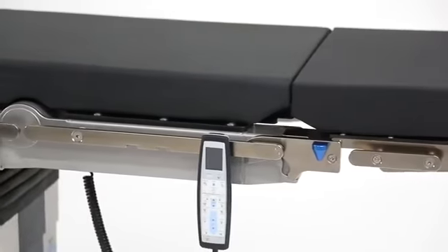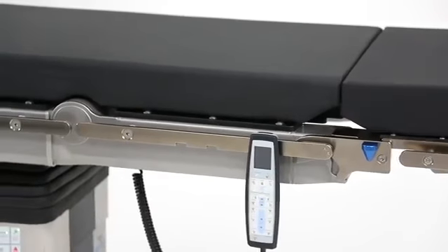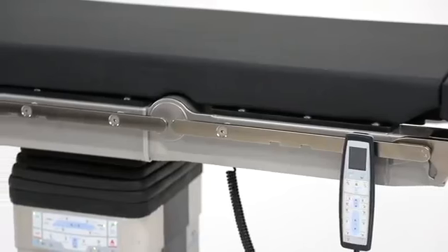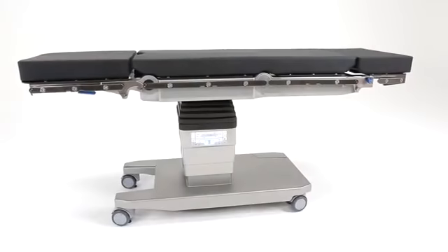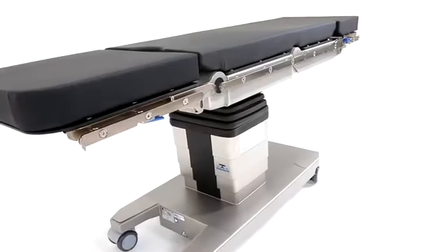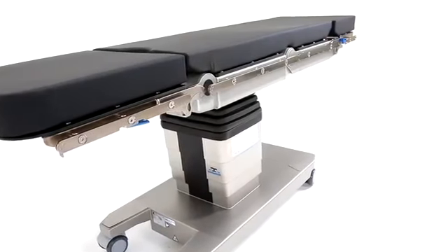By listening to you, the end users, and keeping safety, efficiency, and usability as core requirements, Trumpf Innovation once again delivers a flexible, intuitive, and highly reliable surgical table. Now let's review step-by-step the features of the TruSystem 7000.